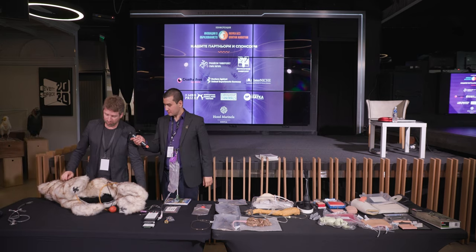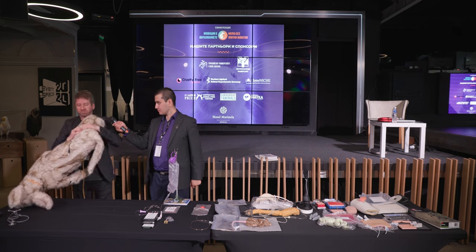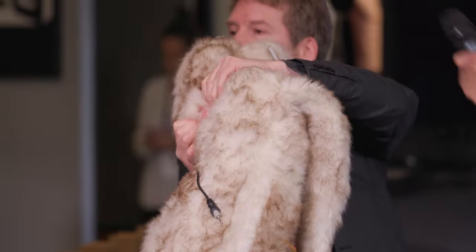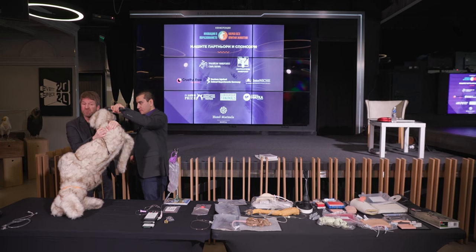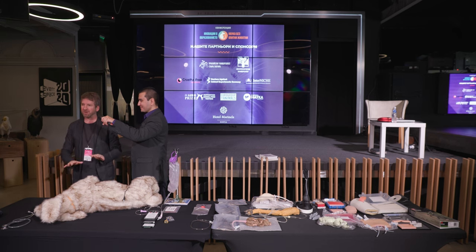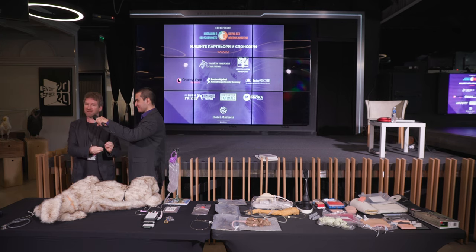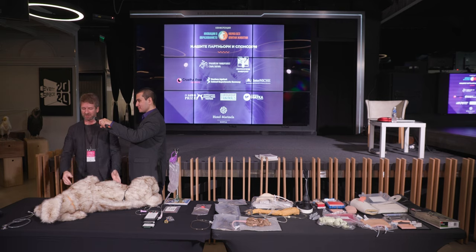We also have a broken bone in the leg — a bone insert. Inside that is one of several different bones and fractures that you can buy or 3D print yourself. You can have one type of fracture, two, three types of fractures, and others. Then you can actually do the whole process of preparing for the surgery and fixing that bone — everything from gloving and gowning and preparing, draping, doing everything right, and then actually fixing that fracture. You're prepared when you work with a real patient because you've done it already, and you've faced all the emotional scenarios and experiences, as well as the technical and practical aspects.